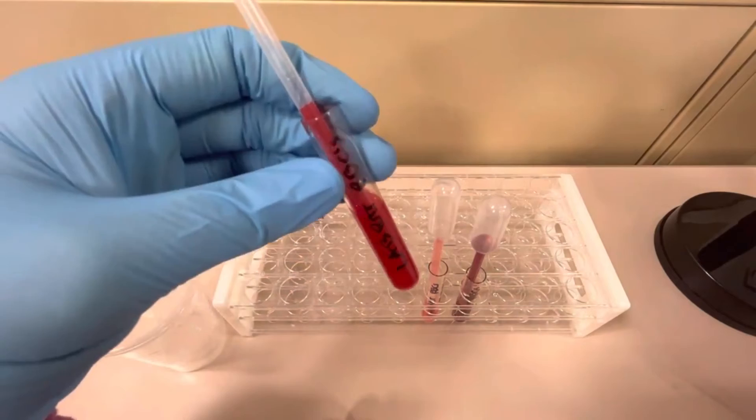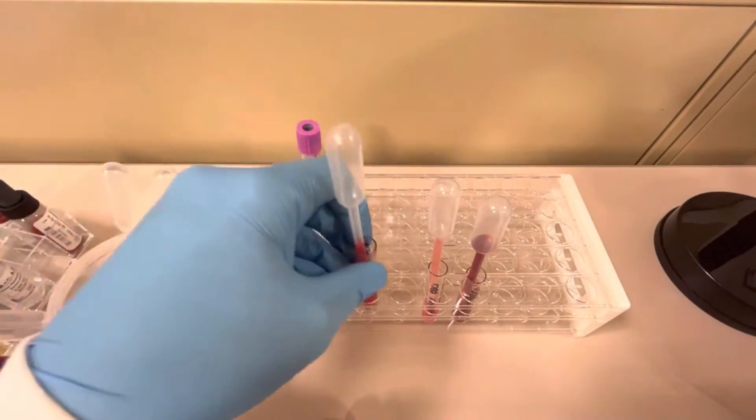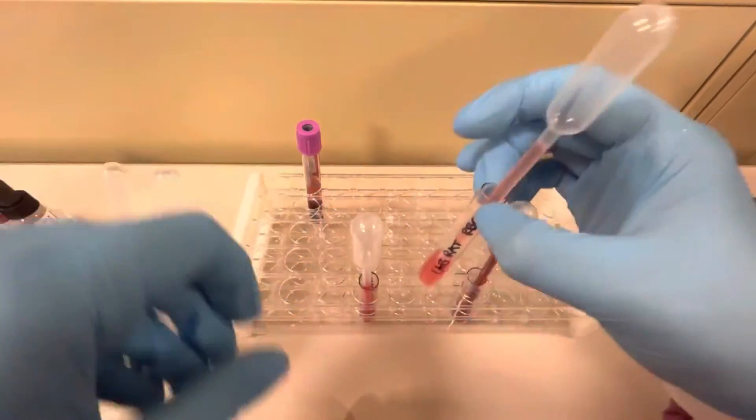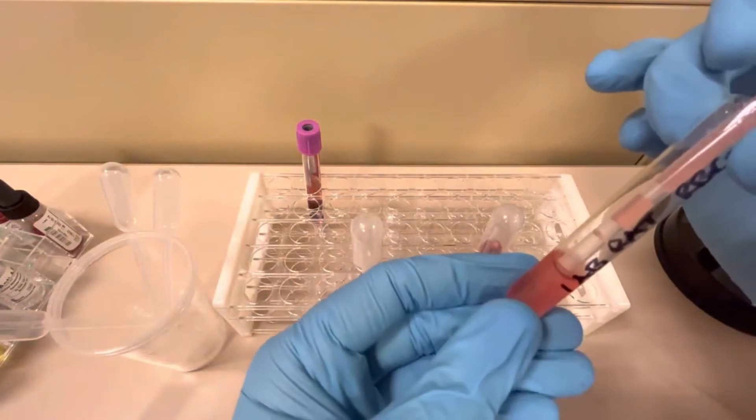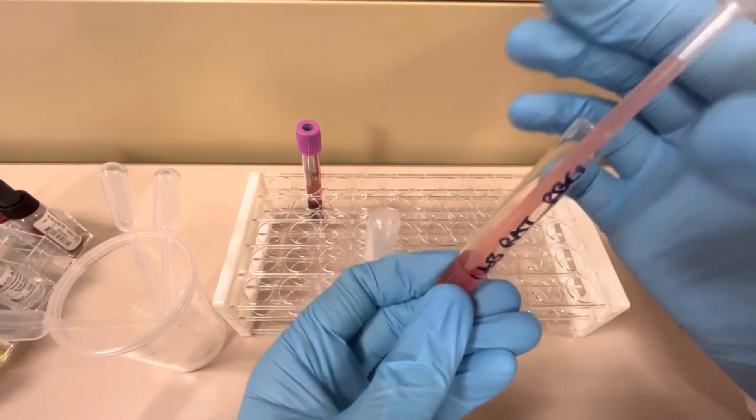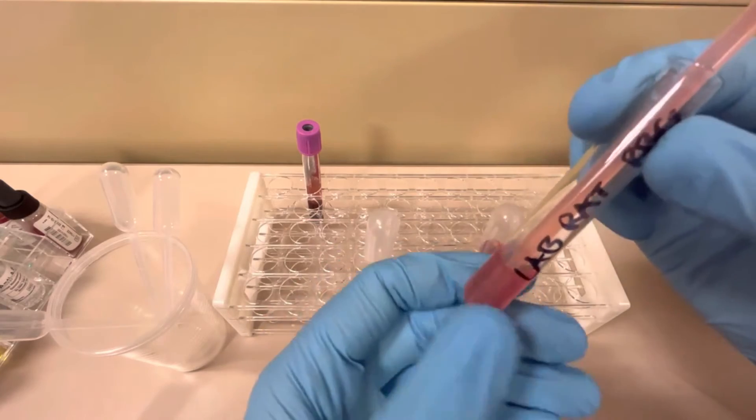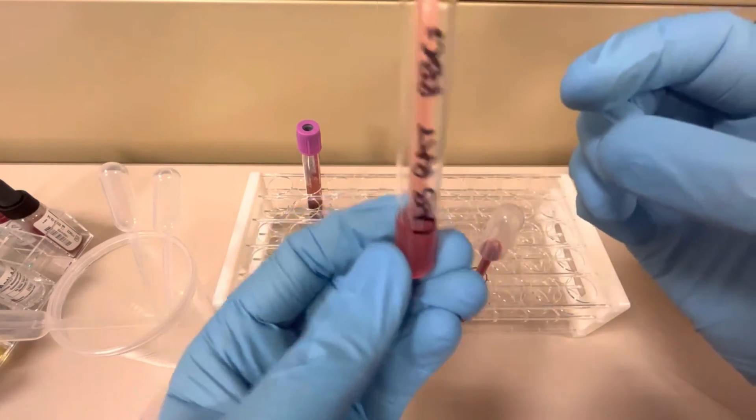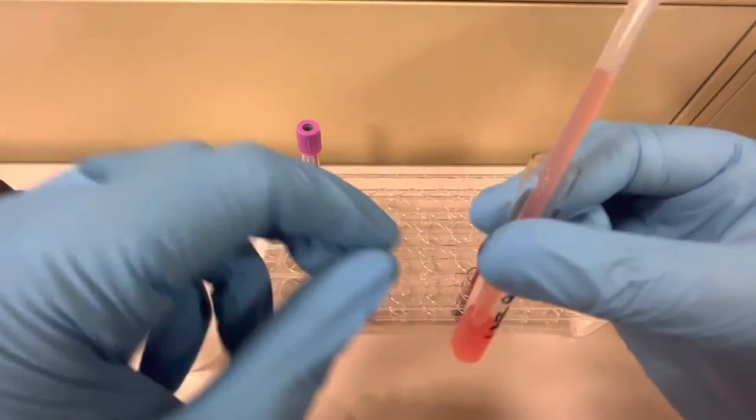Okay, so I've incorrectly made red cell suspensions for you. So again, this is the correct one. This is a proper three percent red cell suspension. It looks great. This is good. Now this one here, there's not enough blood in it. You see how light it is? This is not efficient. This would give you incorrect results in the blood typing.